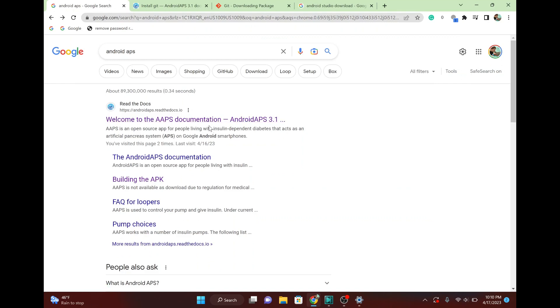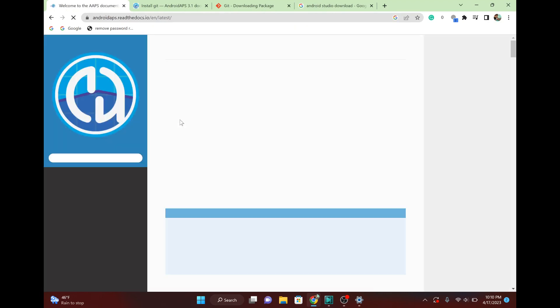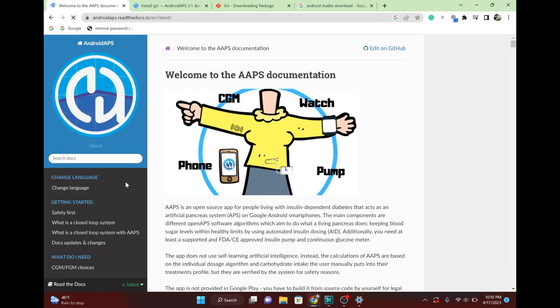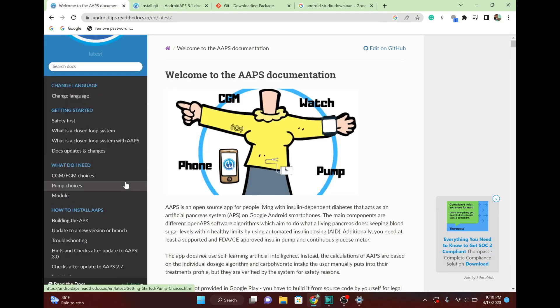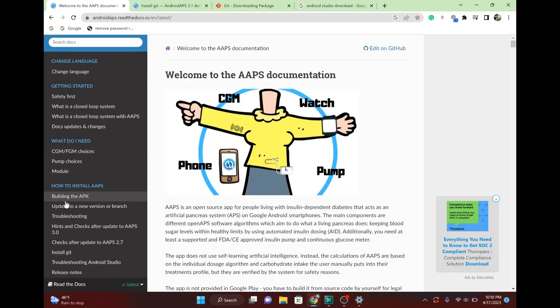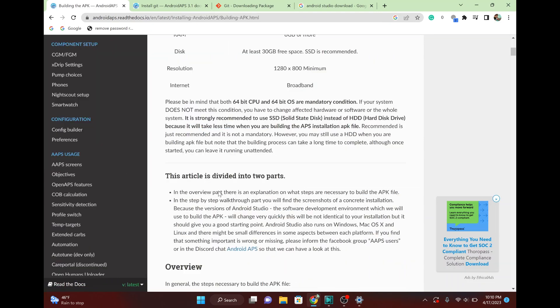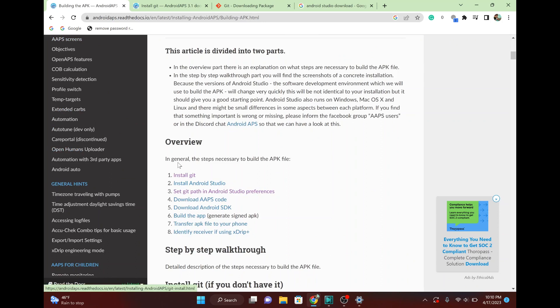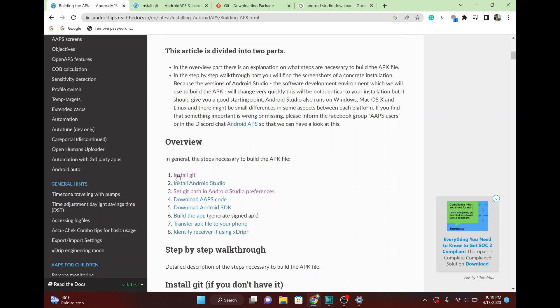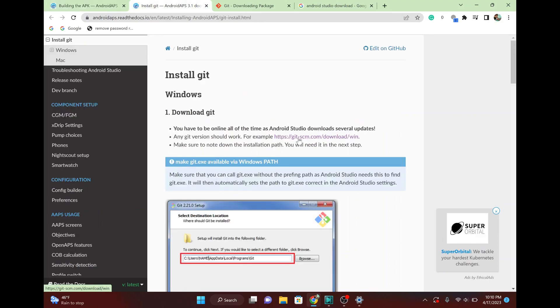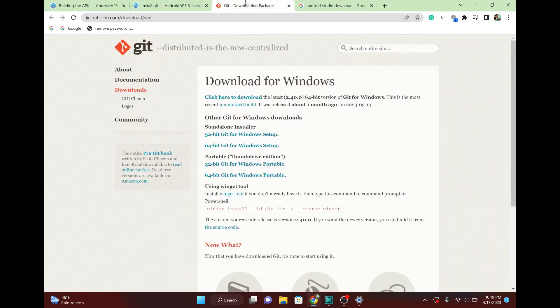Okay, just so that you guys can follow along, just Google Android APS. And we're just going to go through the building the APK docs. So first two steps are installing Git and installing Android Studio. So you click on this first link. It'll give you some instructions. But basically, just the main thing you need is just this download link. Download just the standalone installer, whether you're on 64-bit or 32-bit. The vast majority of people are going to be on 64-bit.